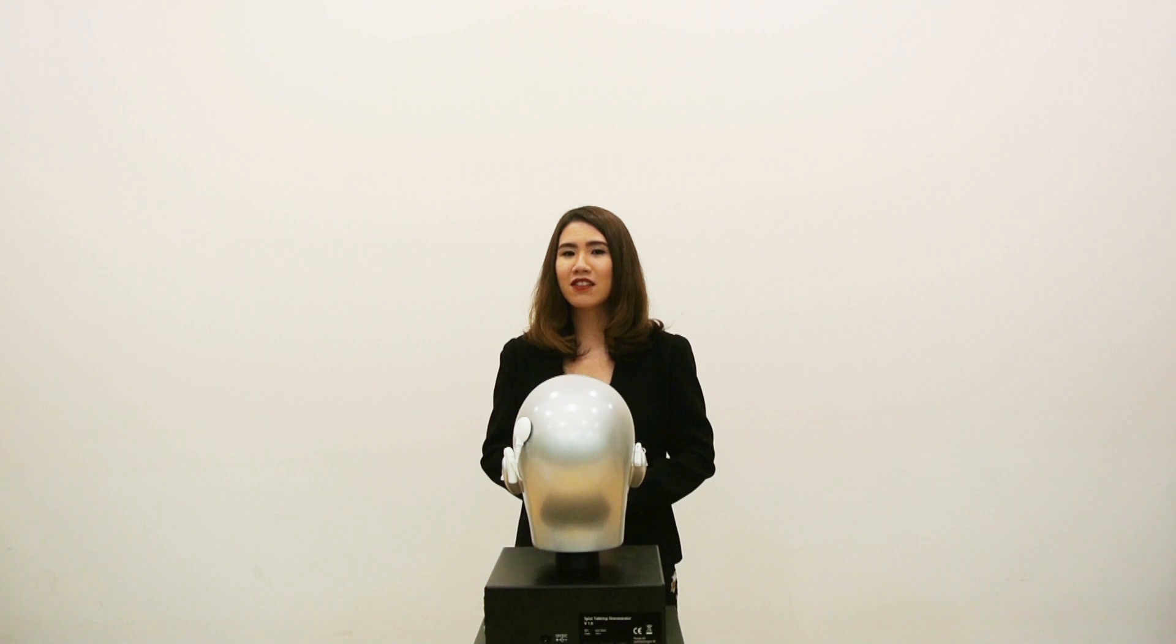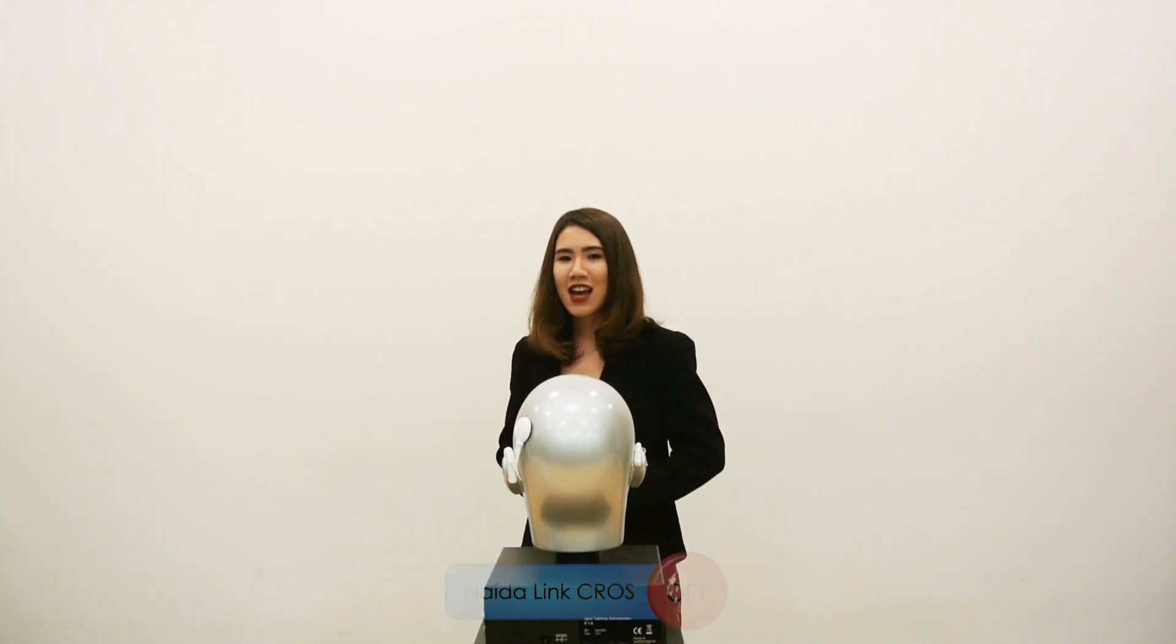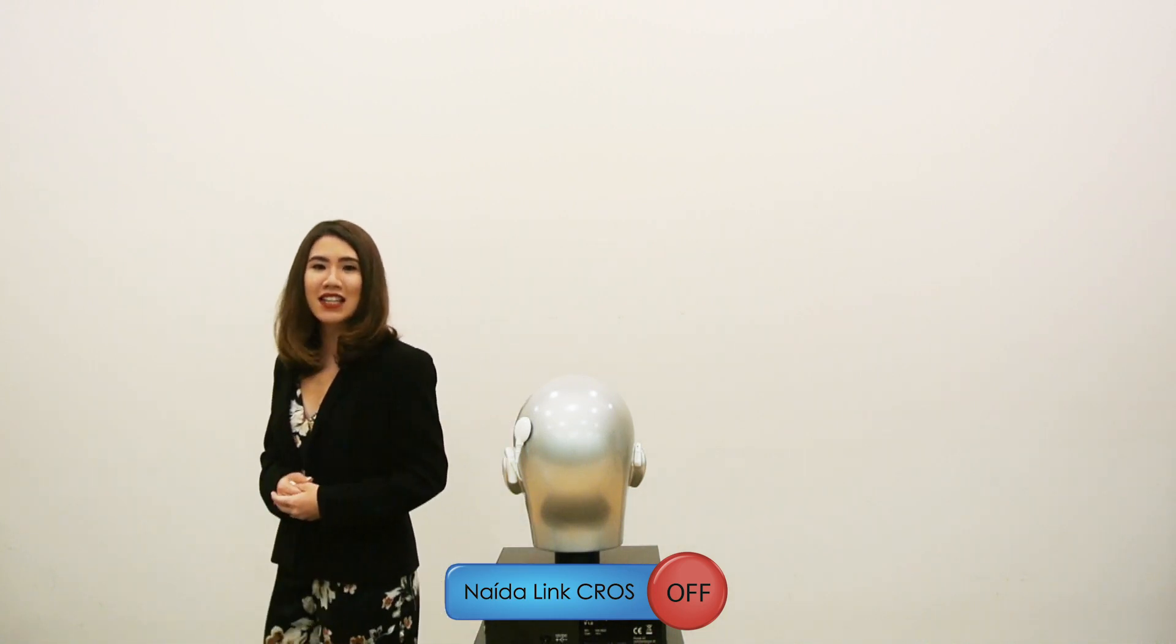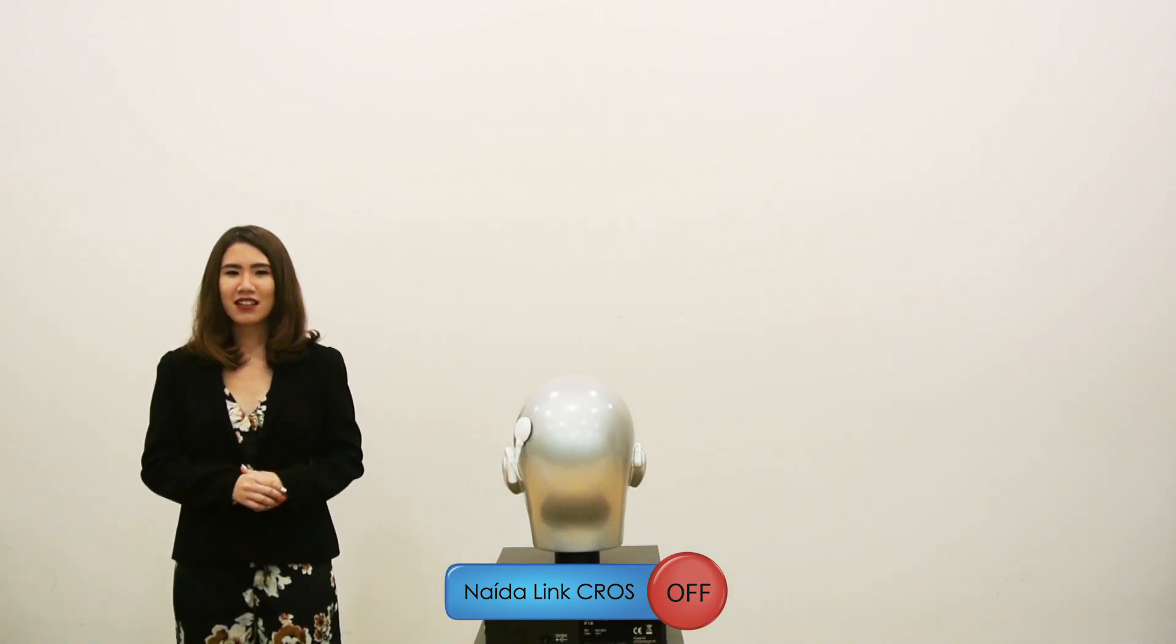Now, I will demonstrate how the CROS benefits our users in a noisy environment like a restaurant. As I'm standing on the cochlear implant side, you can still hear me just fine despite the noise.